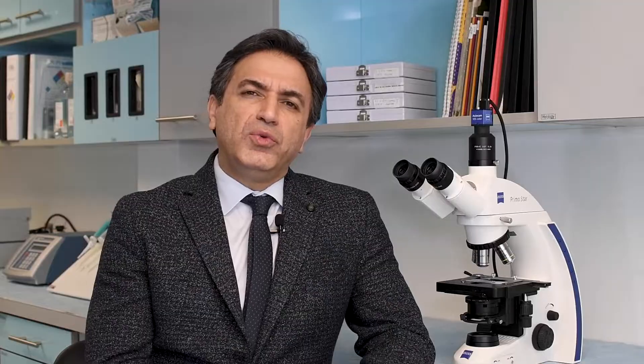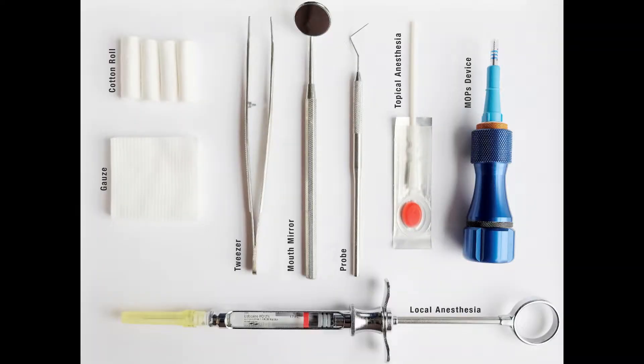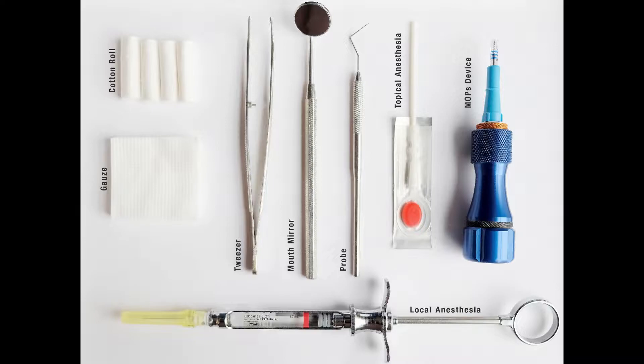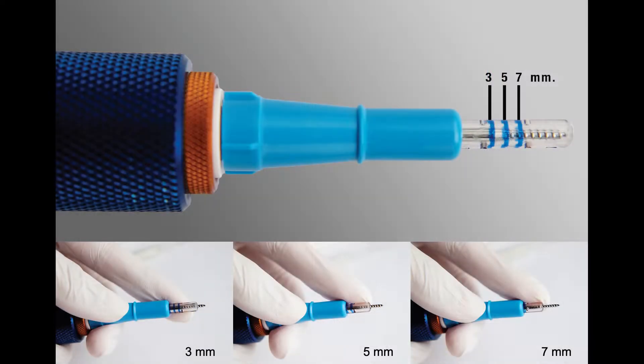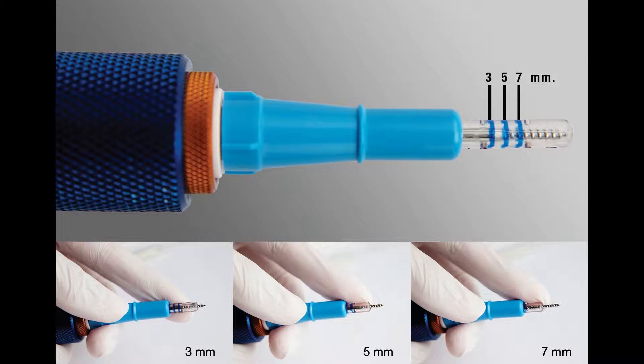If you plan to apply MOPS, you need minimum equipment or instruments. The first things that you need are a topical anesthetic, local anesthetic, and an instrument to apply MOPS. Instruments to apply MOPS are either manual or with a rotatory machinery at low speed. The purpose is to cause perforation inside the bone without causing significant ulceration in the tissue.